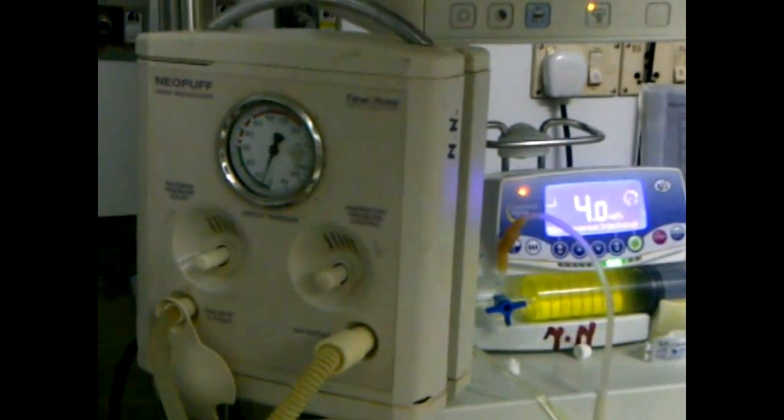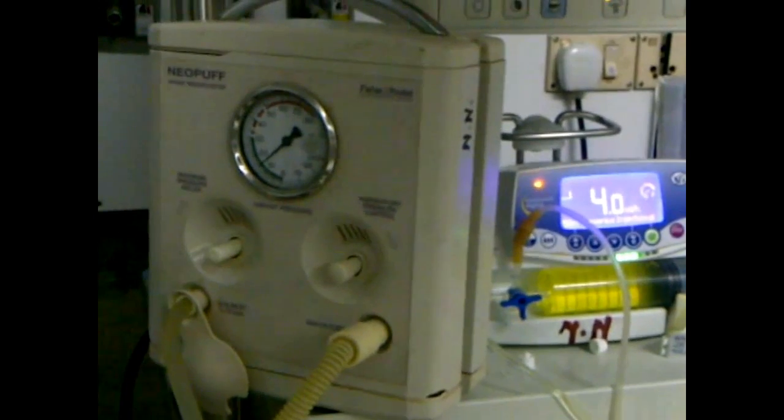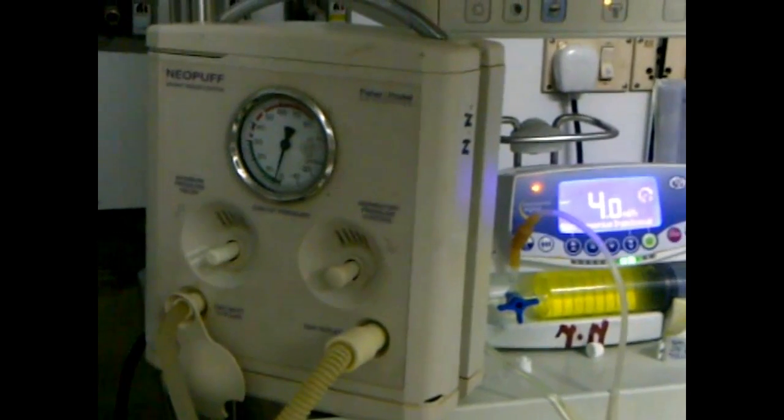This instrument is designed to provide breath with consistent pressure unlike an Ambu bag. Most importantly, it doesn't require any electricity source and can be carried to the labor room for resuscitation.